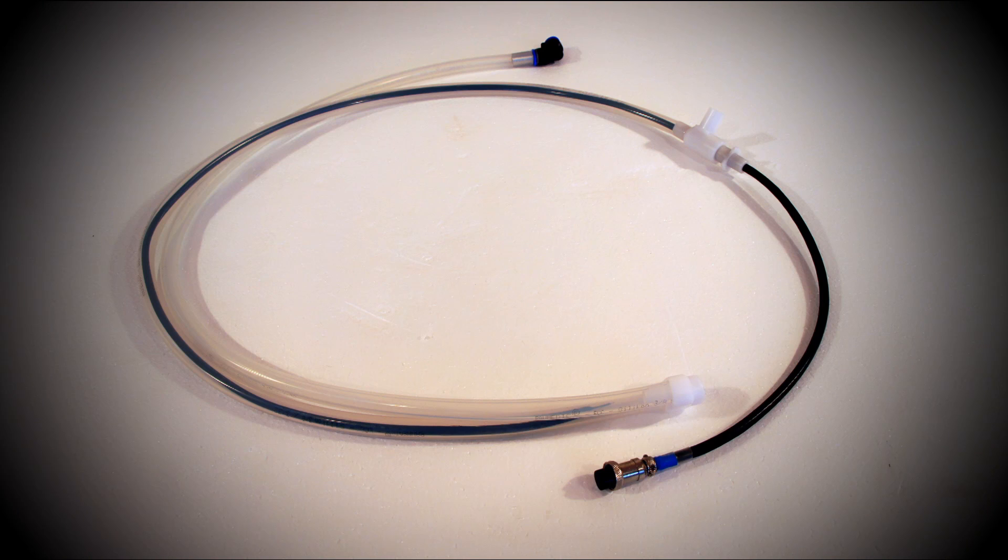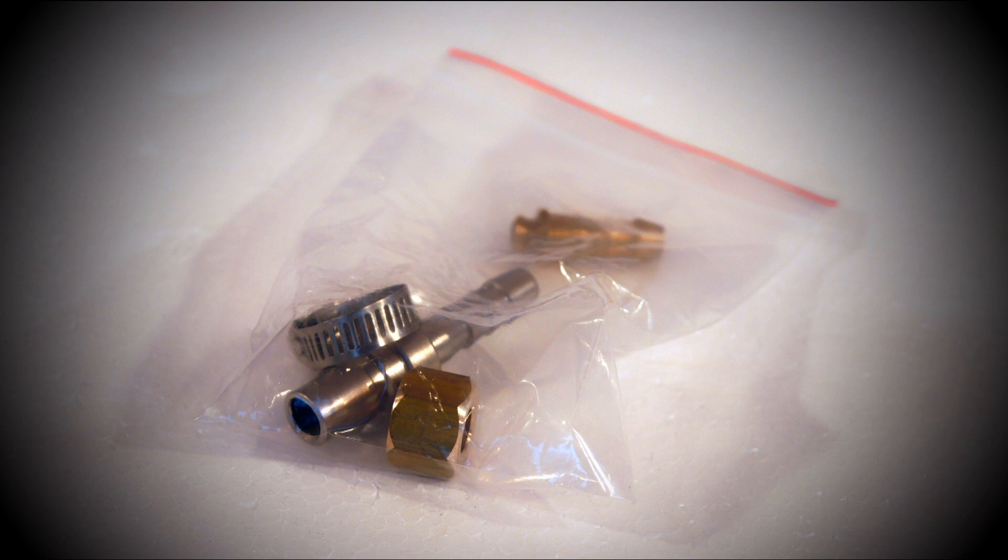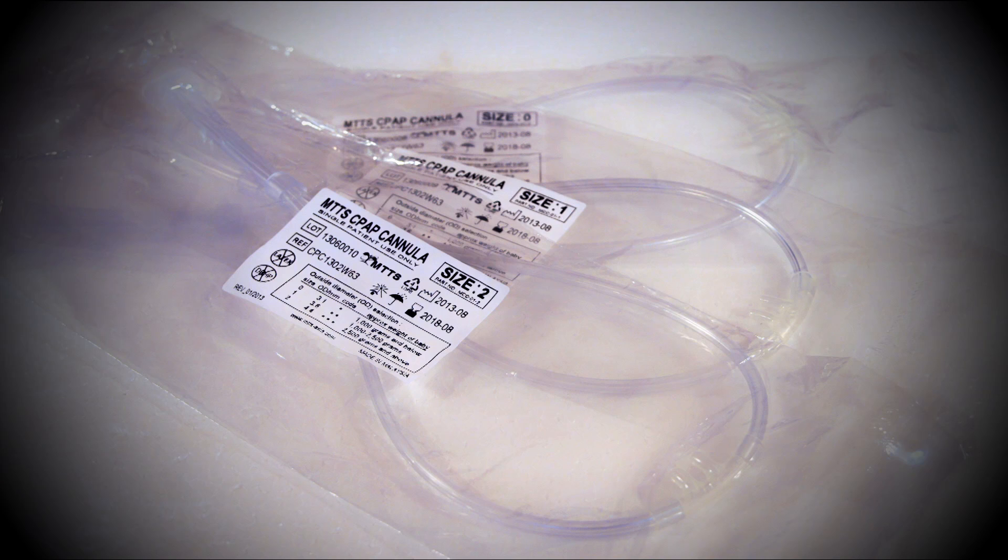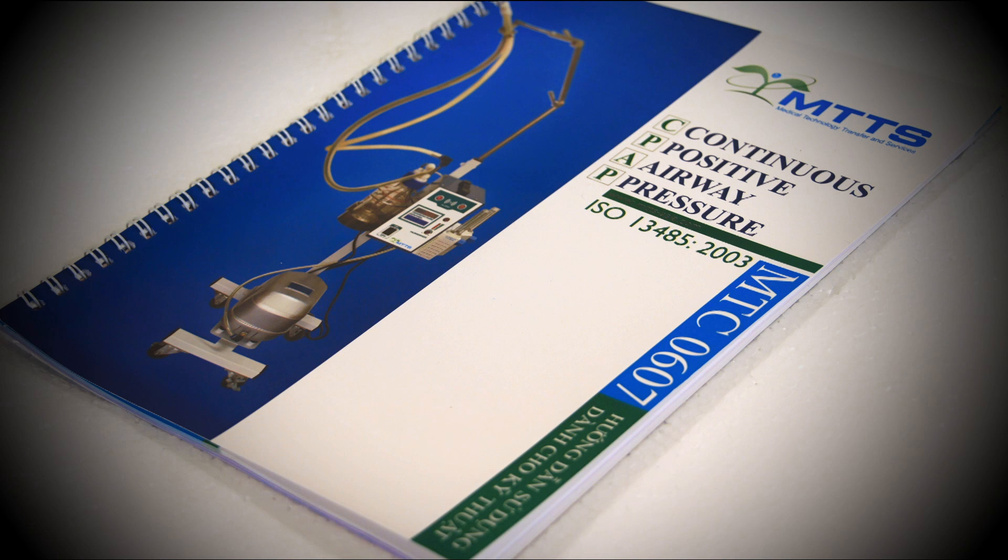You'll also find two patient circuits which include silicon tubing and heater wires, two types of oxygen connectors, a sample nasal cannula, and a user manual.